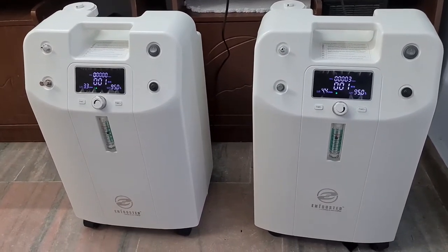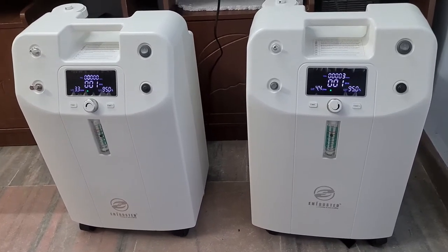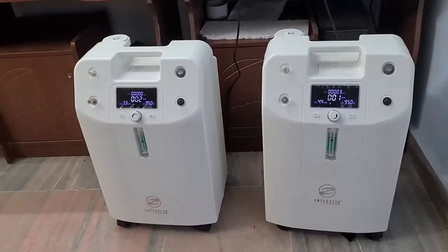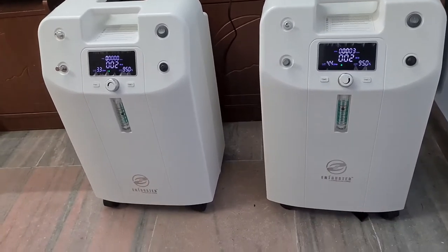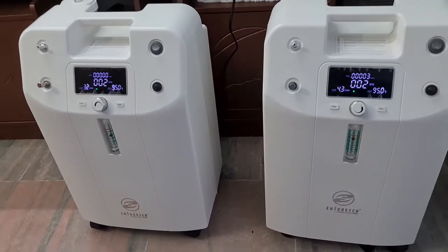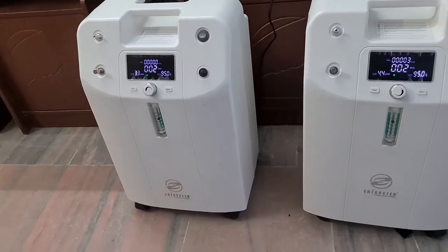How to connect two 5-liter machines to take the desired output. When a doctor prescribes any flow value more than 5 LPM, the question is whether to go for a single 10-liter equipment or connect two 5-liter units. If you go for a single 10-liter equipment, the weight will be between 35 to 40 kg, so it will not be a portable machine — it will be a stationary oxygen concentrator.